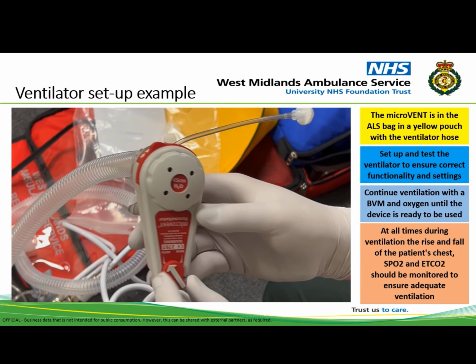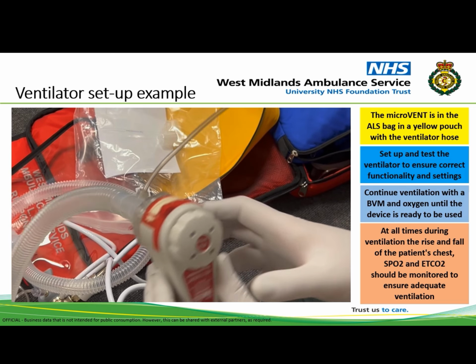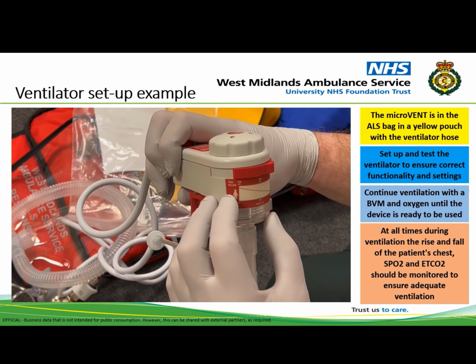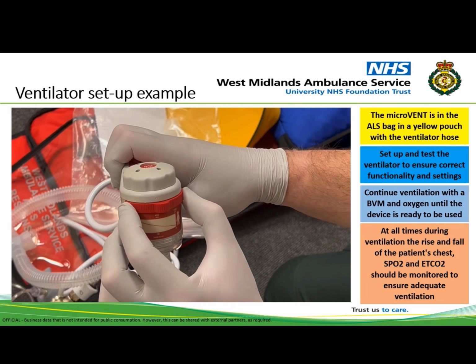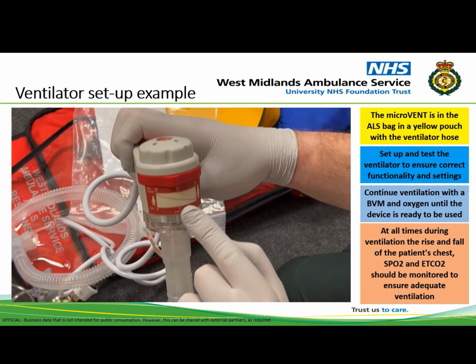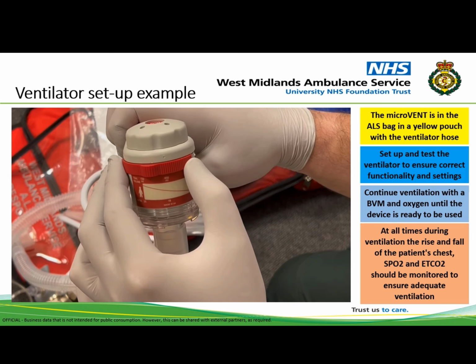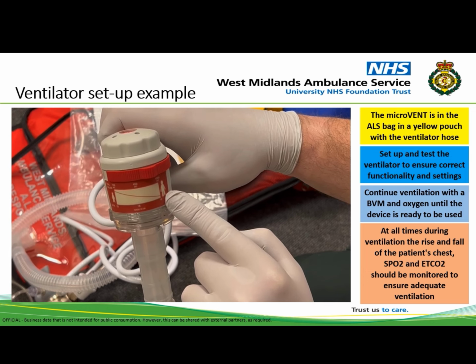The slide switch on the front of the ventilator has a sticker beneath it depicting an adult and a child. Moving the slide selector to the left increases respiratory rate and reduces tidal volume. And there are indications for the rate and approximate tidal volume on that sticker. Moving it all the way to the left is for a small child, and all the way to the right is for an adult at 10 breaths per minute.